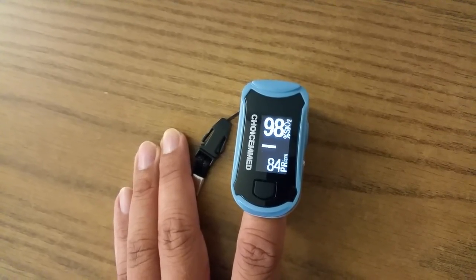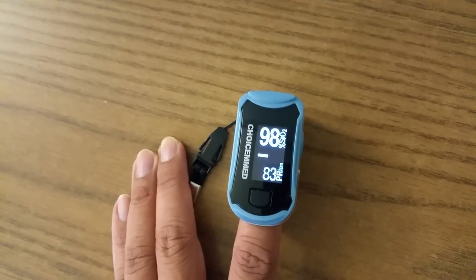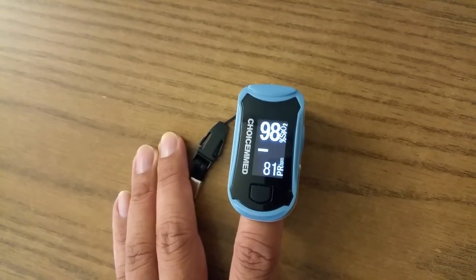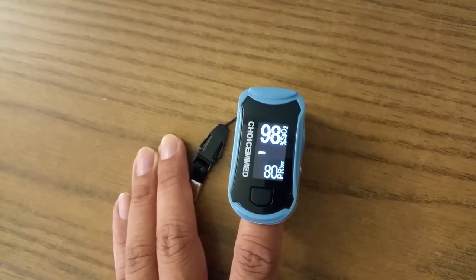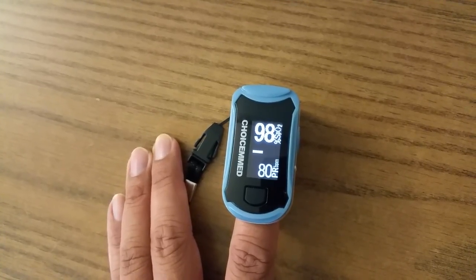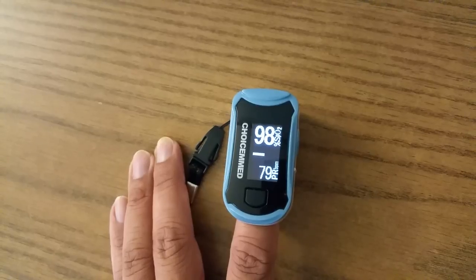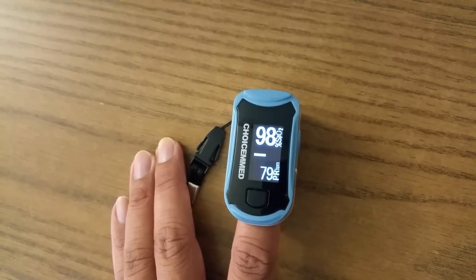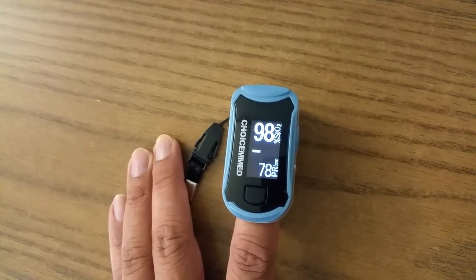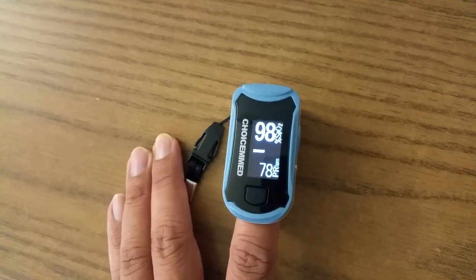For your pulse, if it's over 100 that is a fast pulse — right now it's about 80. And if it's lower than 55 then you have a slow pulse.